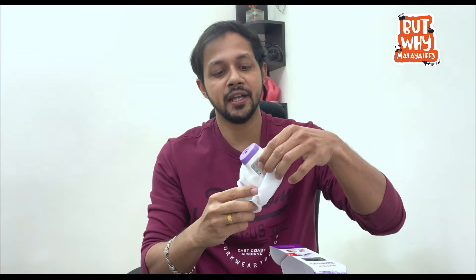We are going to unbox the thermometer. We are going to scan the temperature. The trigger button, the display, the IR point — the battery is in the area. We are going to take a closer look at the details.